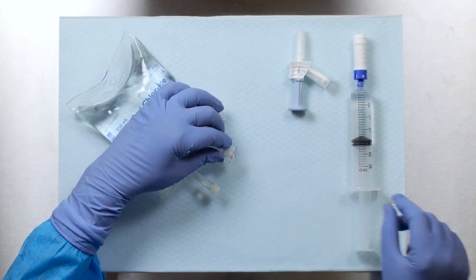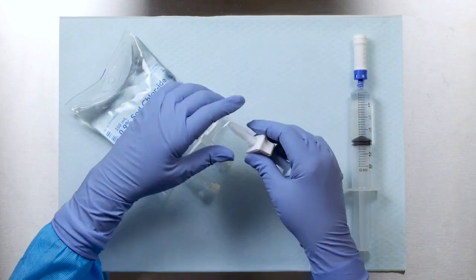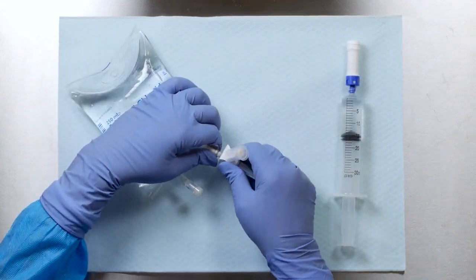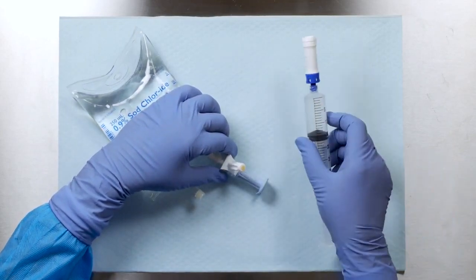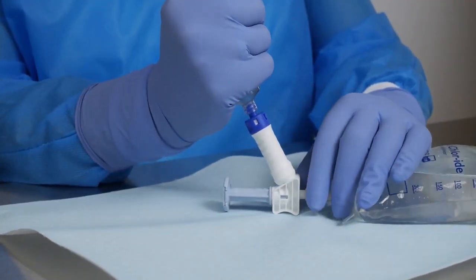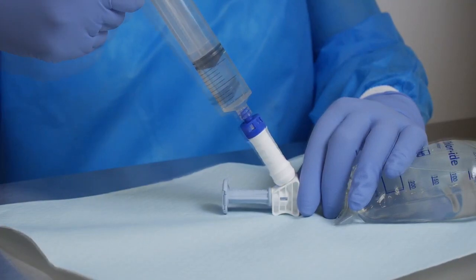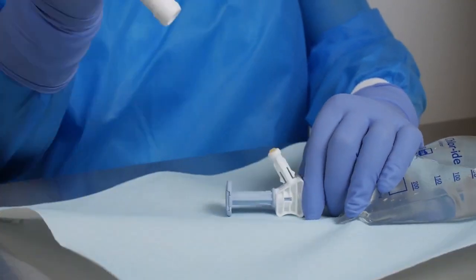To prepare an IV bag for infusion. Remove the protection cap from the spike of the infusion adapter. Push the spike fully into the IV container. Remove the cap from the infusion adapter connection interface. Slide the injector straight onto the connection interface until the two pieces snap together. Perform drug transfer. Pull the injector straight back until the two pieces are disconnected.